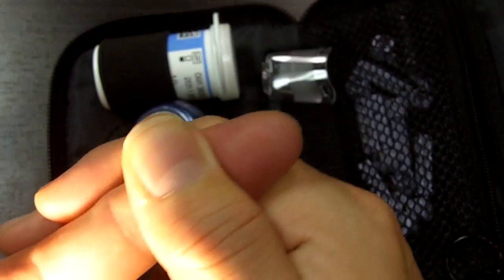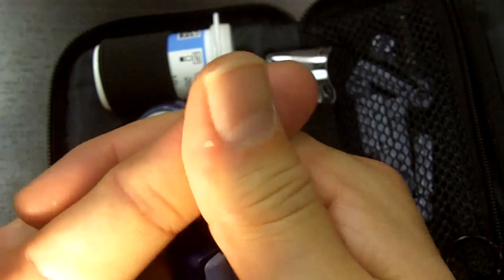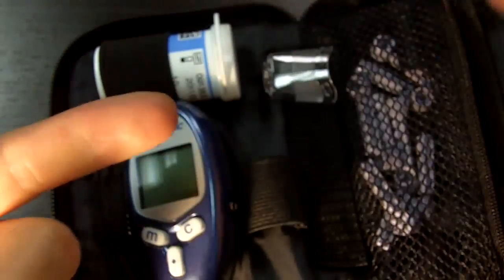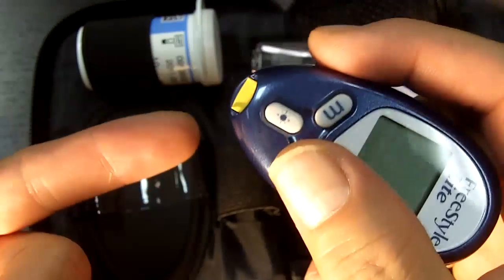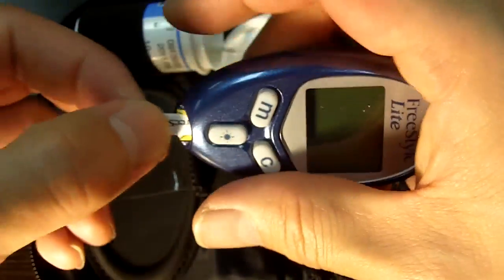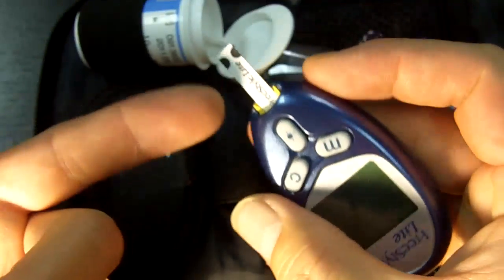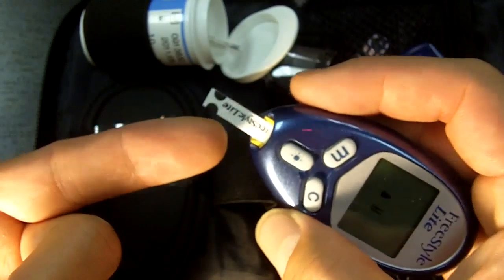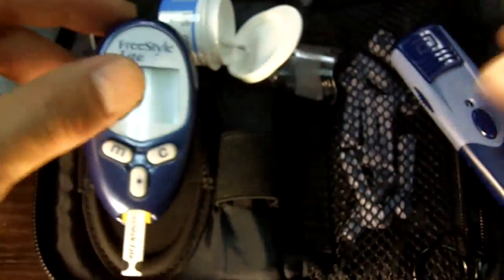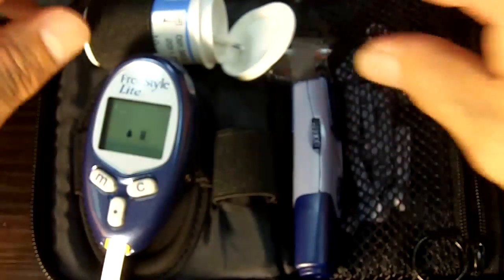You can see my finger — see how red it gets? You go like that and then just press. That's the easiest way. You'll get some blood, then put your meter exactly the same way up against there to get your reading. Real simple — you put the strip in, wait until it tells you it's ready, bring it up against the blood until it beeps, and then it'll give you a result. Real simple when it comes to the fingers.